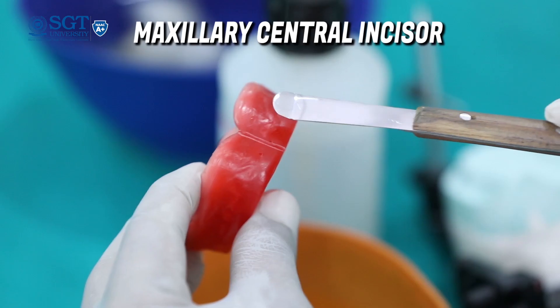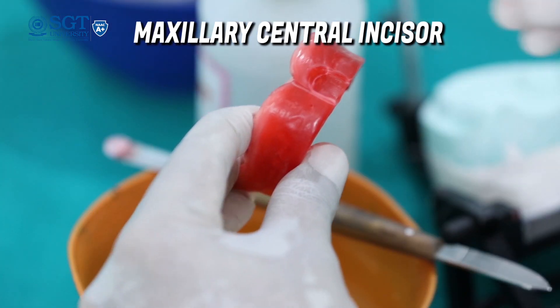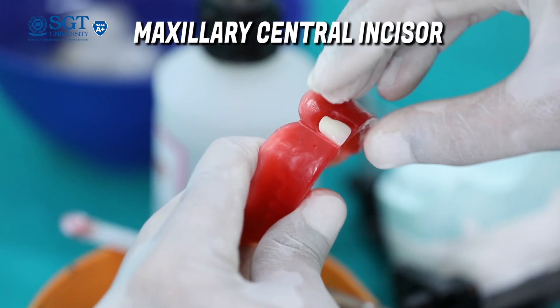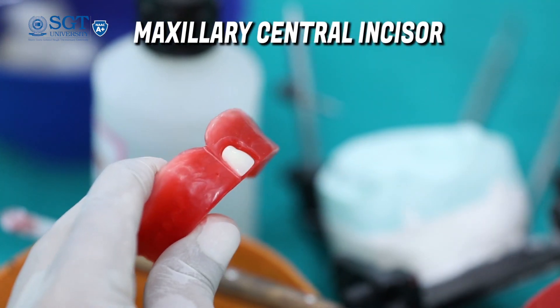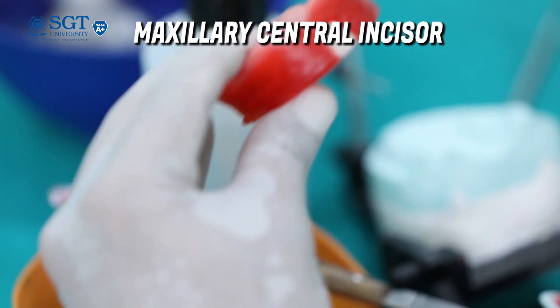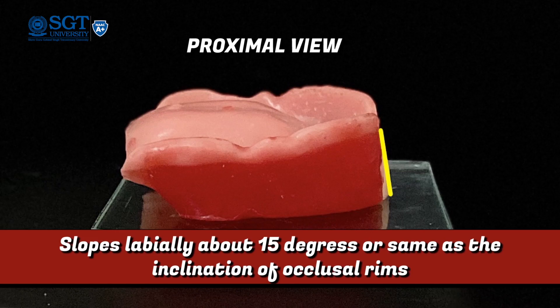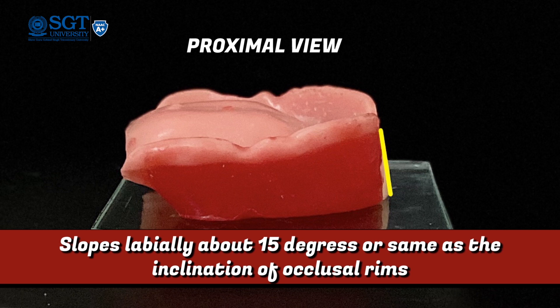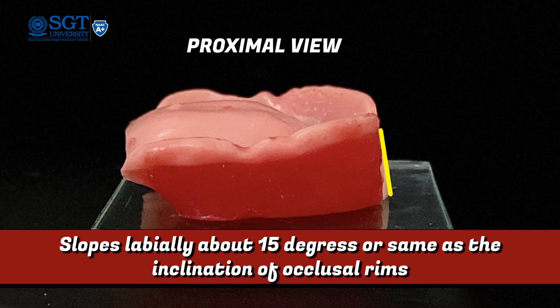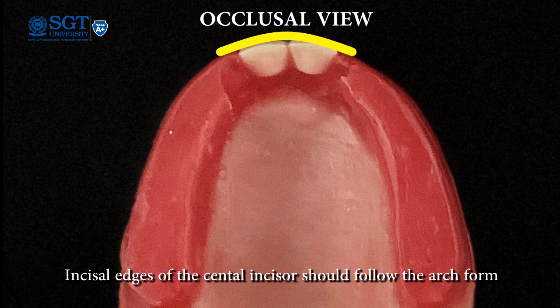First, you should heat your instrument properly over the flame for at least 10-20 seconds and melt the wax properly. Then you should start by placing the right side maxillary central incisor. When arranging the maxillary central incisors, keep in mind the following points. In the frontal plane, the incisor edge should touch the glass slab and the long axis of the tooth is parallel to the midline. In proximal view, it should slope labially about 15 degrees and should flush with the labial surface of the occlusal rim.